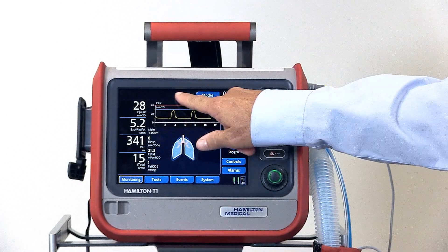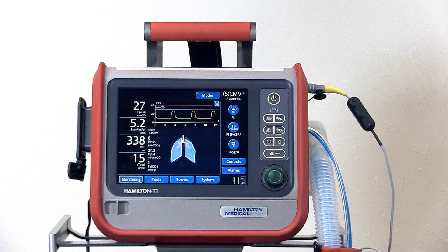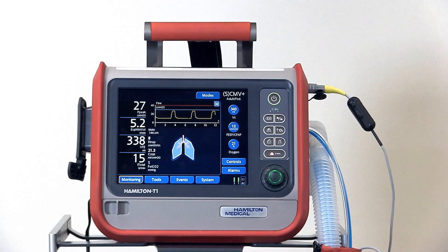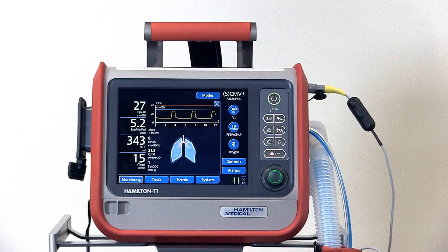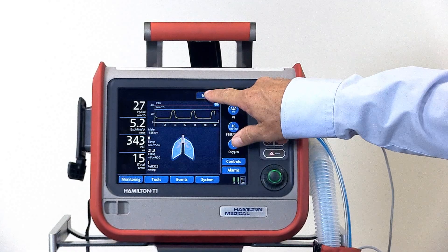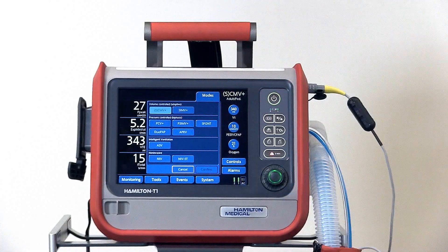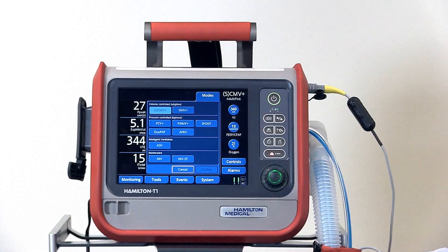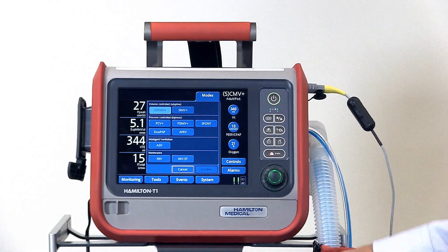This section is the message bar where you'll see alarm messages and technical messages. And then there's the Modes tab where you'll find all the different modes available.